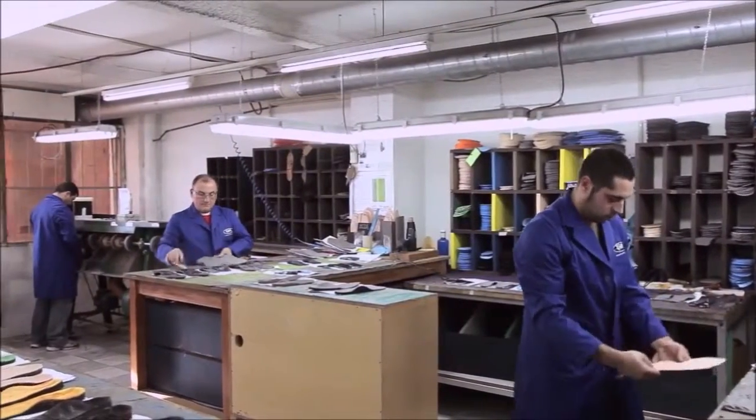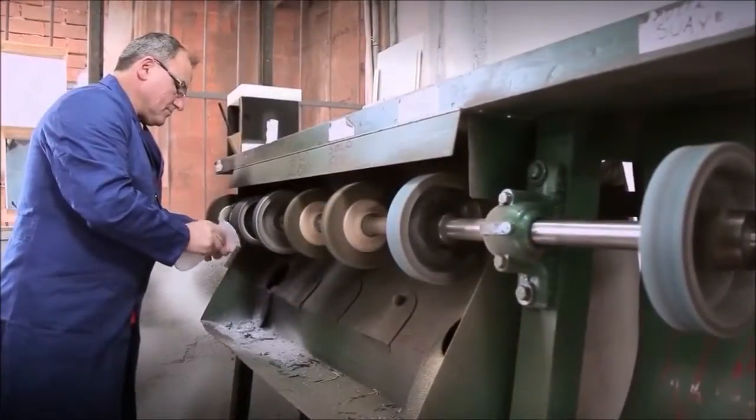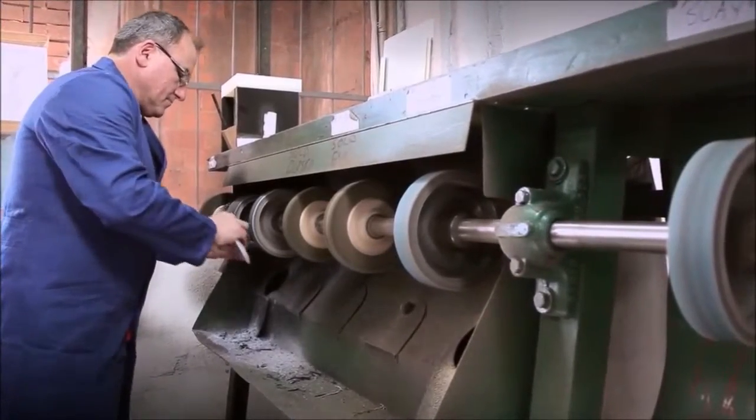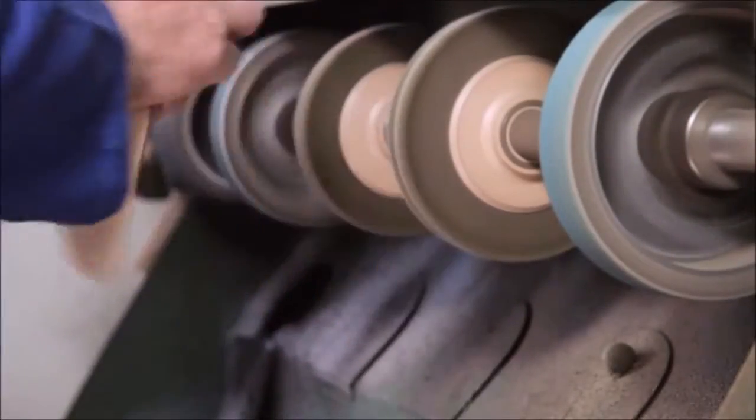Our 500 square meter manufacturing facilities employs a team of full-time experienced craftsmen to deliver over 4,000 pairs of orthotics every month.